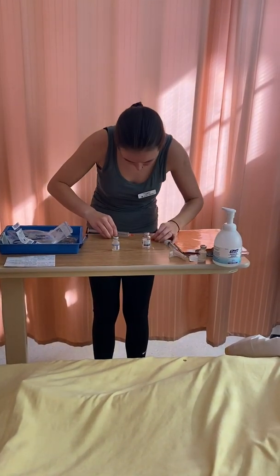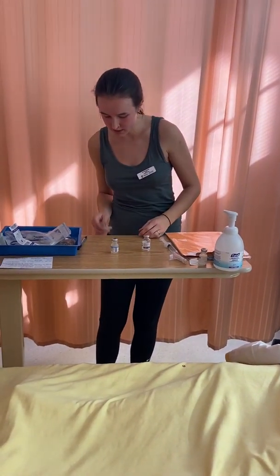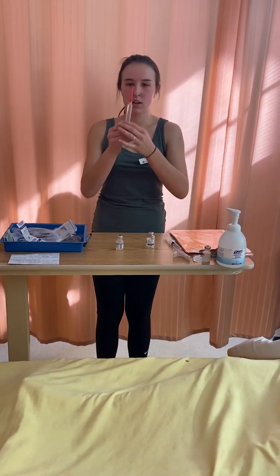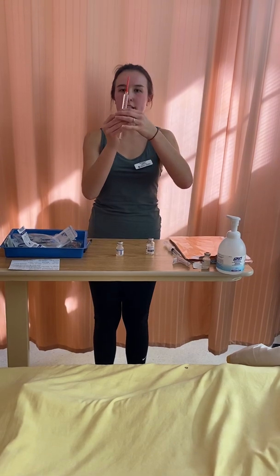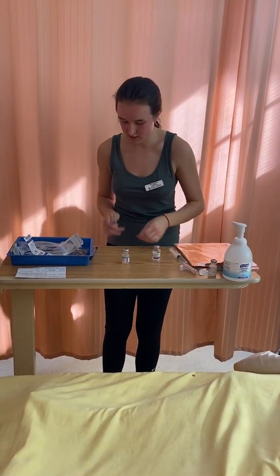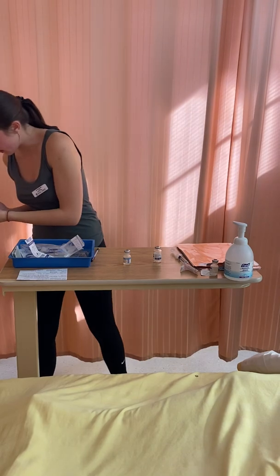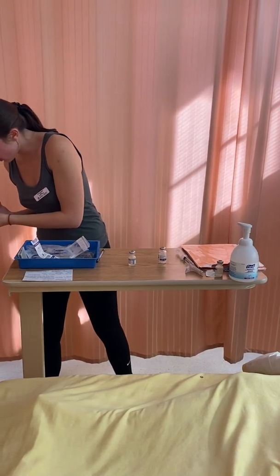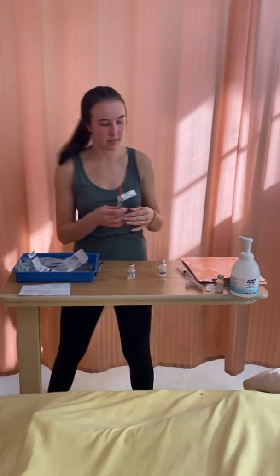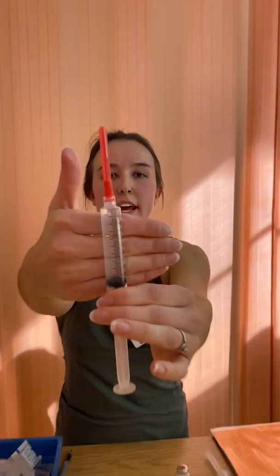I'm going to recap my syringe and get rid of any bubbles. I need to ensure I have 10ml. I have a little bit over, so going to the sink I push up to 10ml. Again, showing that I have 10ml.